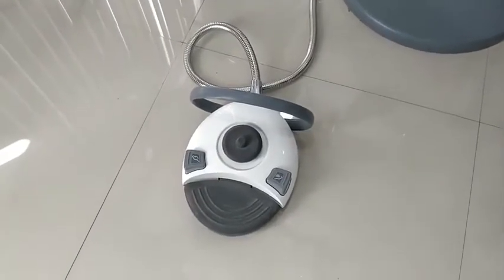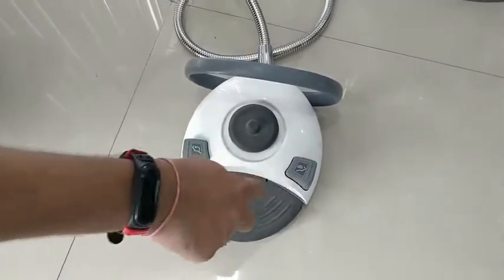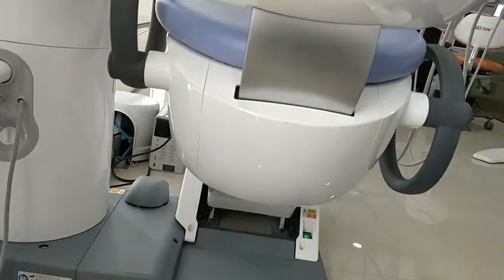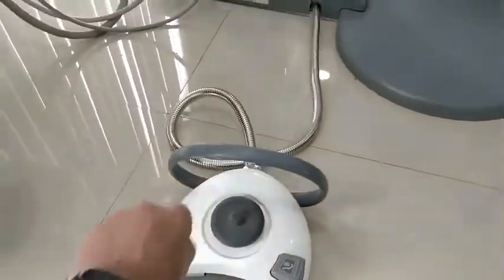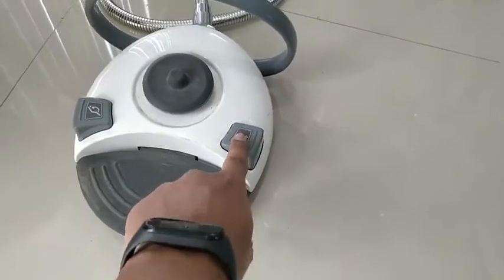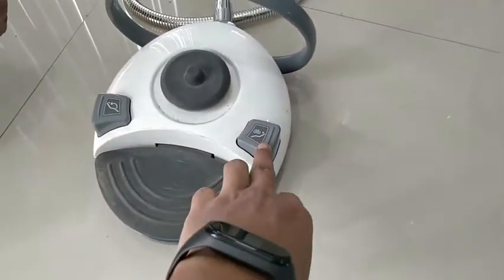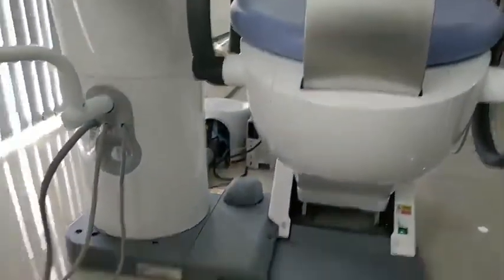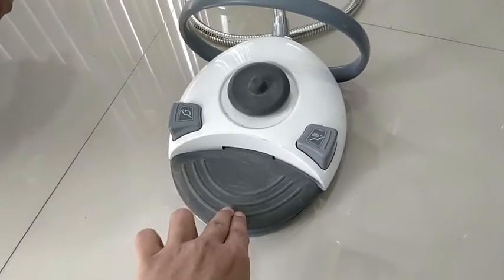The foot controller has a joystick, two buttons, and a foot paddle for operating the handpieces. The joystick controls the chair up/down and backrest up/down. The two buttons are for the gargling position and return position, and require two presses so the chair won't change position accidentally. The foot paddle operates the handpieces during surgery or dental procedures.